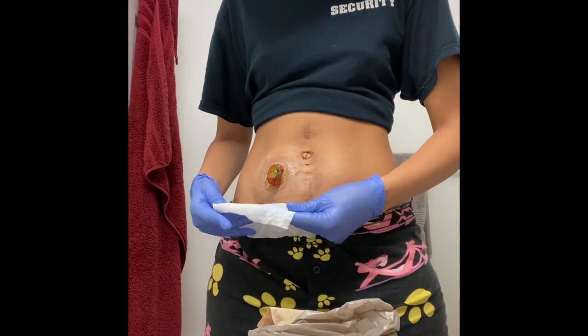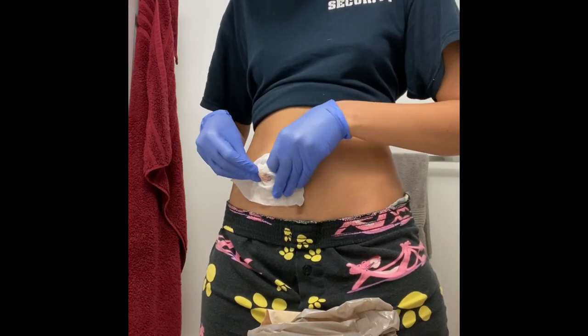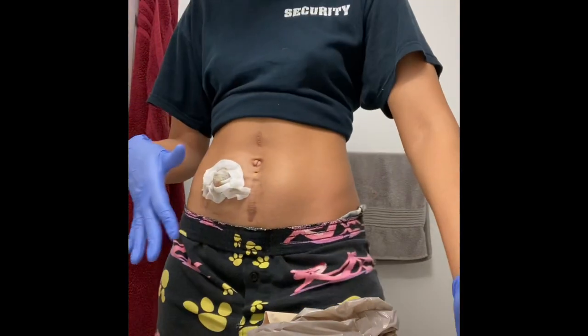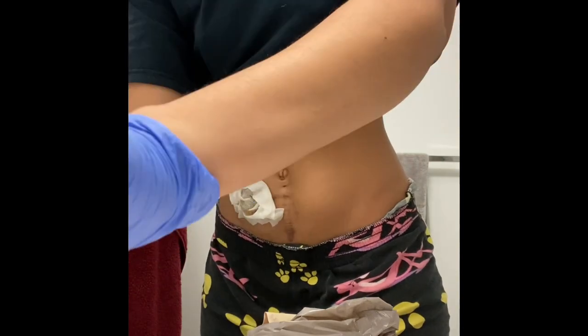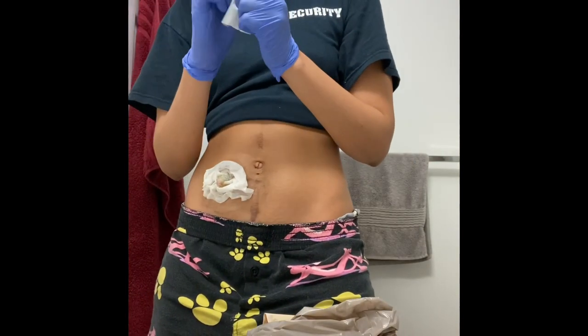I am also not worried about Bert taking a shit on me everywhere, because I'm more equipped at handling him. I know what times he goes and I'm careful not to eat before I change him. As you can see, I'm getting ready to clean around Bert — just getting some water and a lather of mild unscented soap.